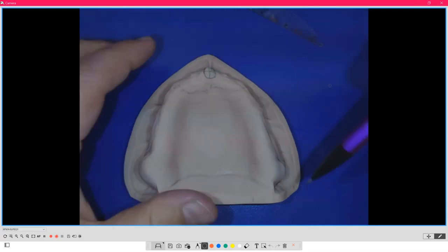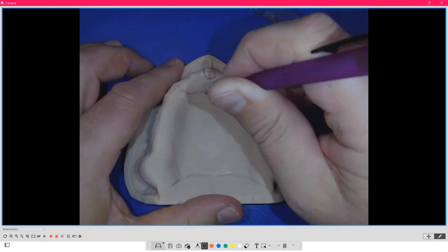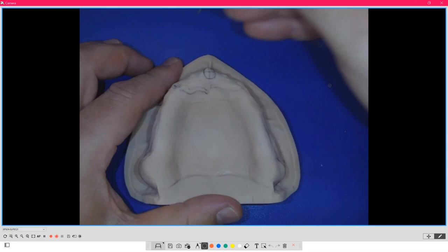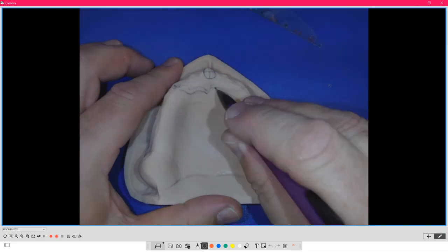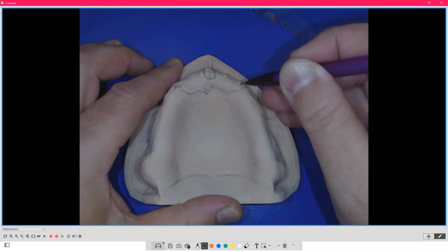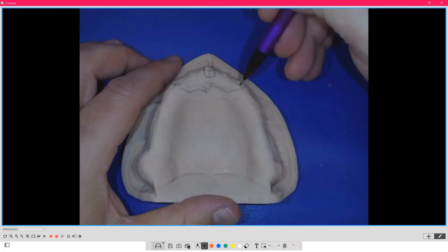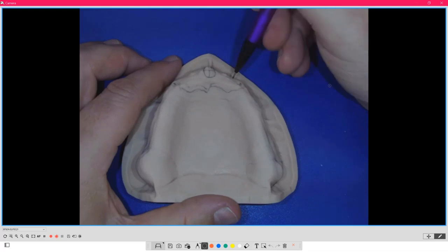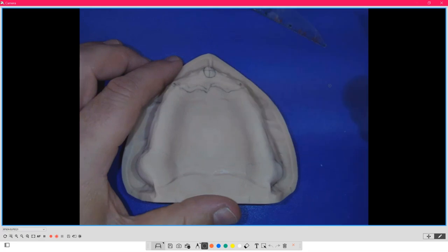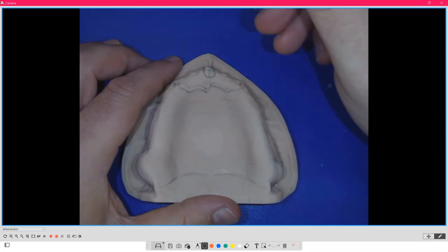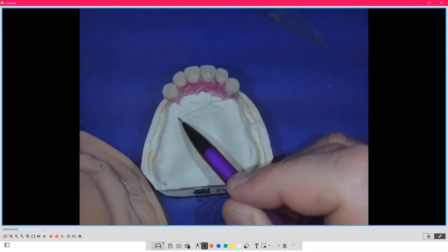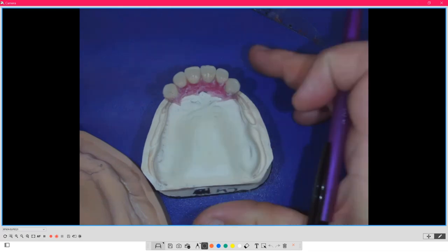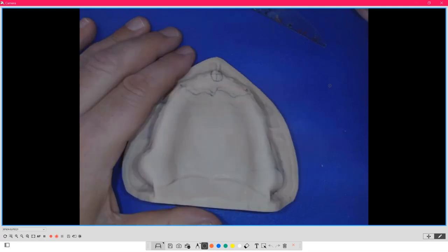The second thing we do is circle the long branch rugae — the rugae right after the incisive papilla. At the very end of it you draw a dot on each side. That tells us where the canine, the upper cuspid, goes — plus or minus one millimeter. This is referencing the central-lateral-cuspid junction. When I do the setup, I cut that area out of the wax so I can see the papilla and rugae, confirming the teeth are in the right position skeletally for that patient. Mother Nature left us reference points.